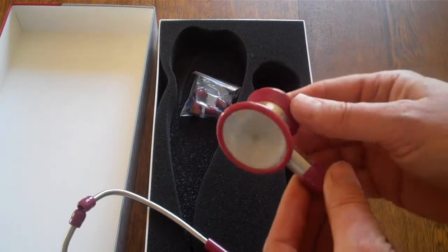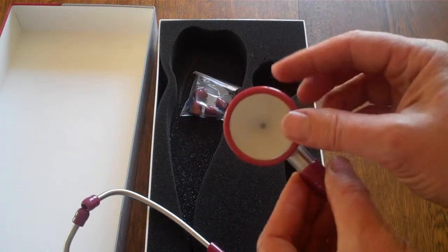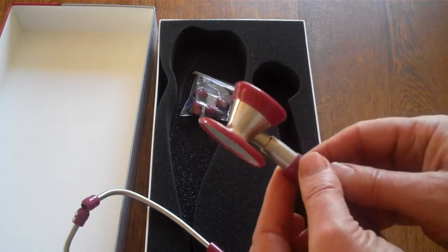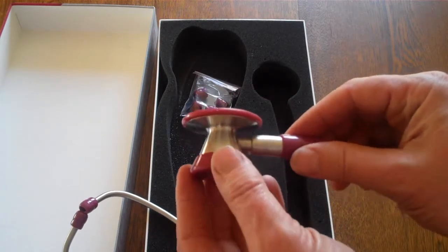Both a paediatric and adult, with diaphragm and anti-chill rings in a matching colour to the tube.